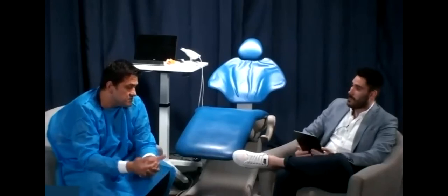You'll see the 2 scans there. It's extremely user-friendly now. So 3Shape's got you covered in that regard, because we've updated and improved that, because we want people to push into tackling these harder occlusions and everything. Well, that's where the money is, Joe. That's what's going to save you the time.